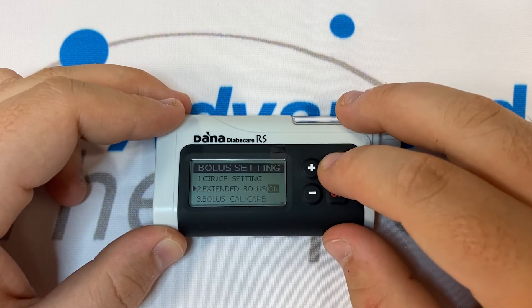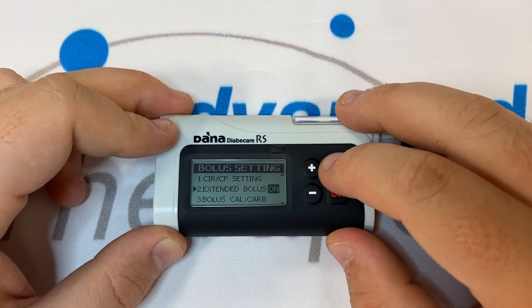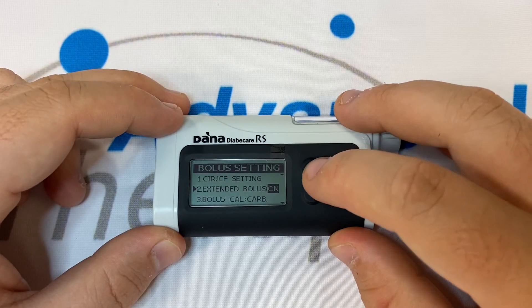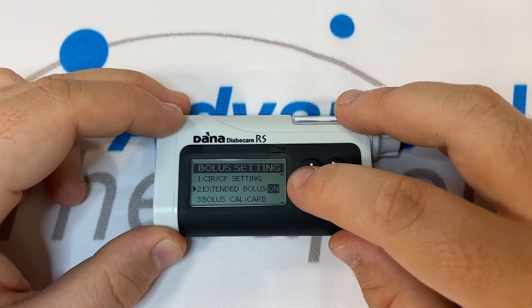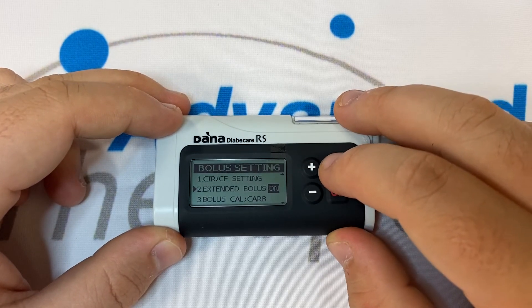Number two in your bolus settings is extended bolus. This needs to be switched on if you wish to be able to perform extended or dual pattern boluses.